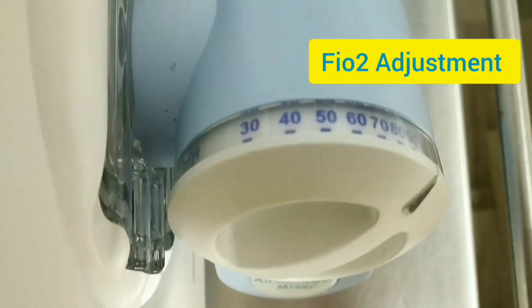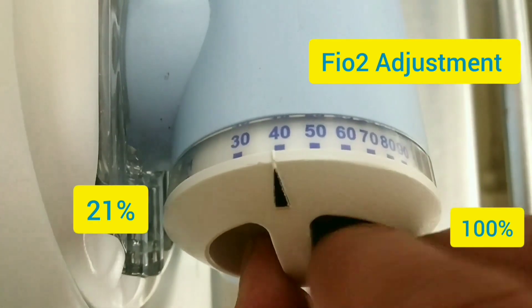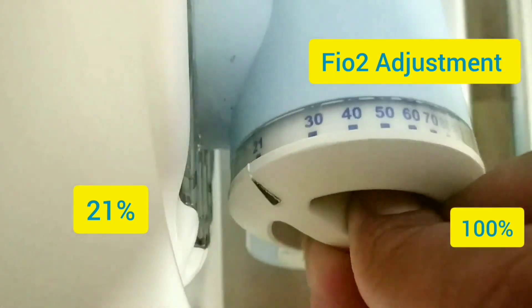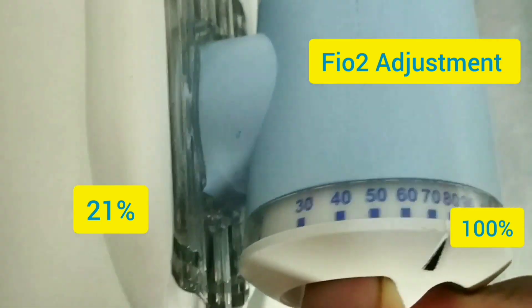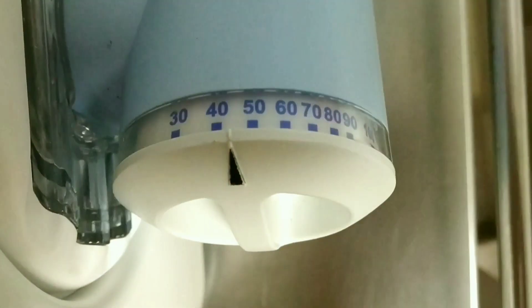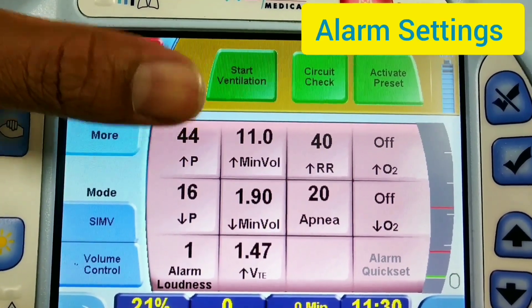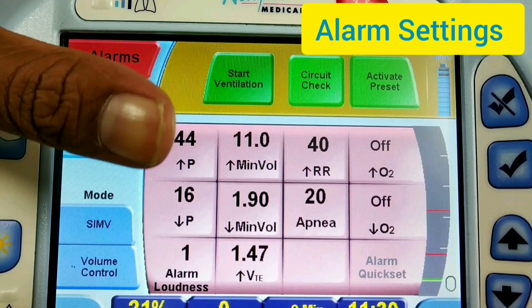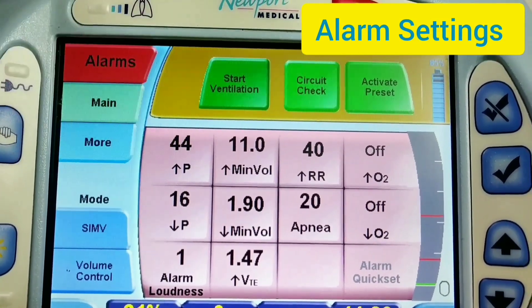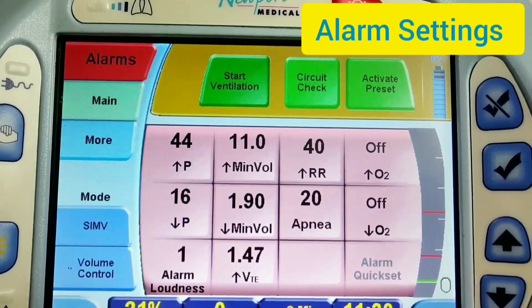Now for FiO2 adjustment — on the left side we can set 21% FiO2 as minimum, up to 100% maximum. From here we adjust the FiO2 — the amount of oxygen we want to deliver to the patient. For alarm settings, if the values go lower or higher than the set values, the ventilator will trigger an alarm.